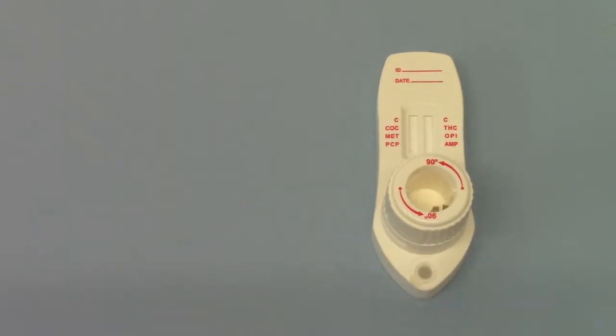This will take between one and a half and three minutes. It isn't a dry swab around a mouth. The swab has to be completely saturated in saliva to gain and discharge enough saliva to run this test.